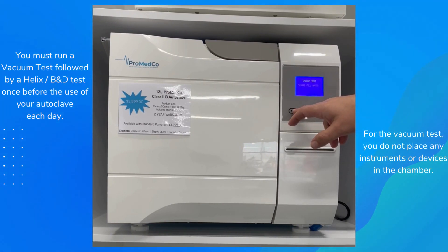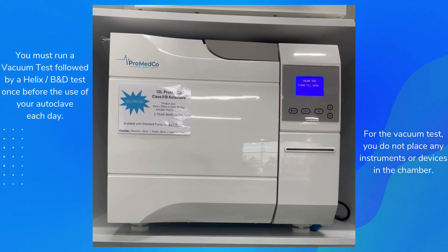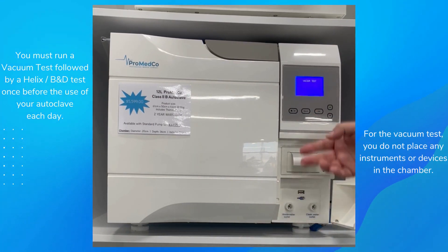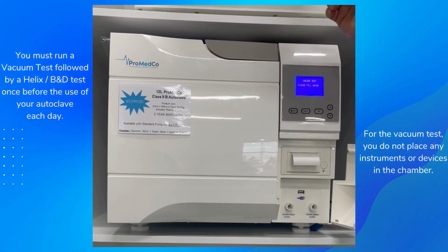It's number nine. Press OK — it's asking to fill water, but if that wasn't an issue you'd press Play or Start and it begins. That'll run for approximately 15 to 20 minutes. Once done, it'll give us a printout to confirm completion, and you'll hear the lock disengage, which allows you to open the door.